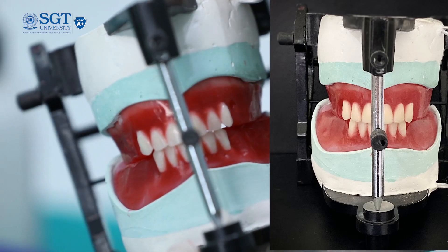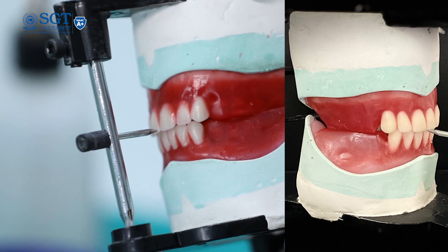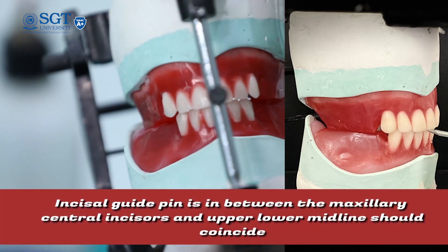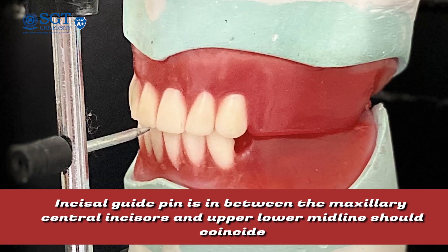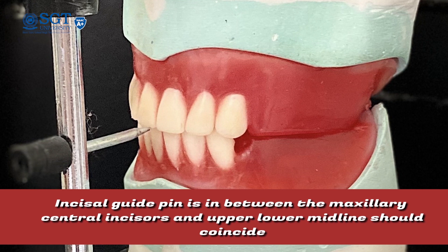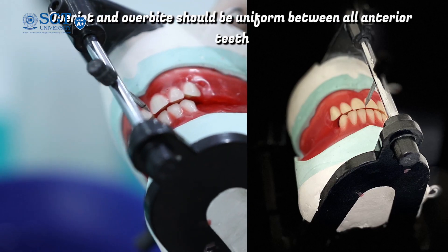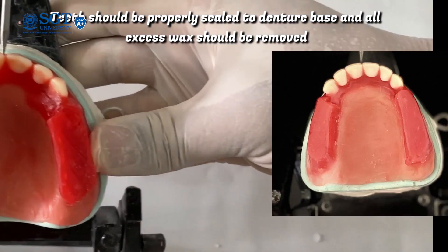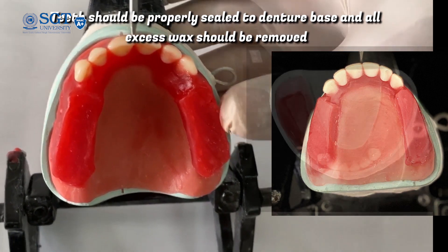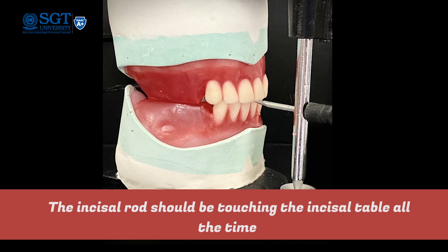After arranging the maxillary and mandibular anterior teeth, we have to keep in mind the following points. The incisor guide pin should be in the middle of the incisor edges of the right and left maxillary central incisors and should be almost touching the incisor edges. The overjet and overbite should be uniform between the maxillary and mandibular anterior teeth. The teeth should be properly sealed with the denture base and all the extra wax should be removed from the occlusal rim. The incisor rod should be touching the incisor table.